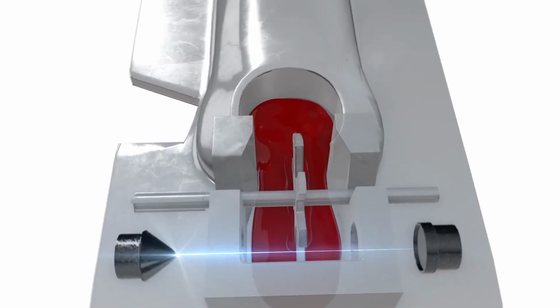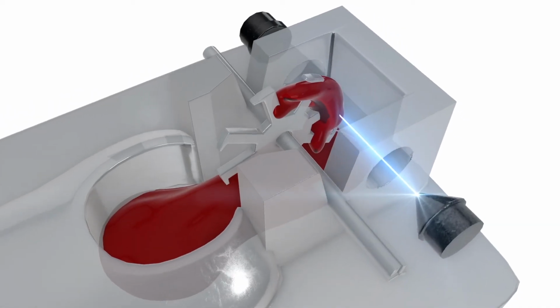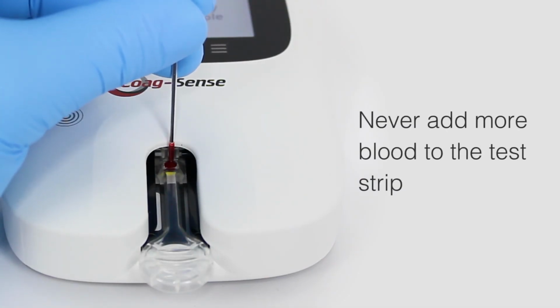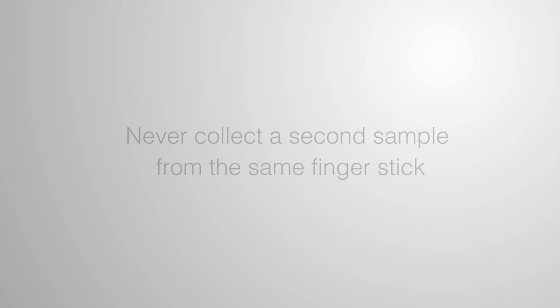The testing time is the patient's actual clotting time, as the system produces a true prothrombin time. Never add more blood to the test strip. Never collect a second sample from the same finger stick.